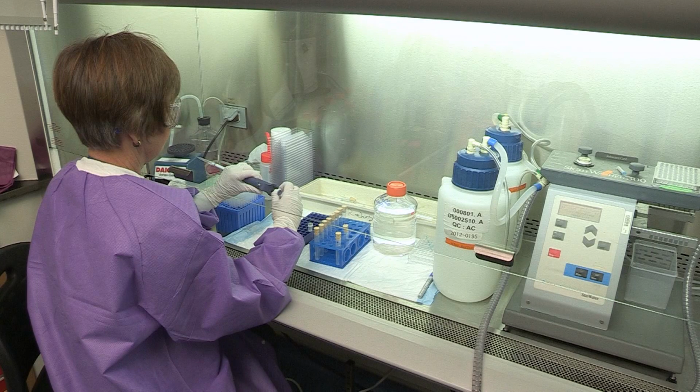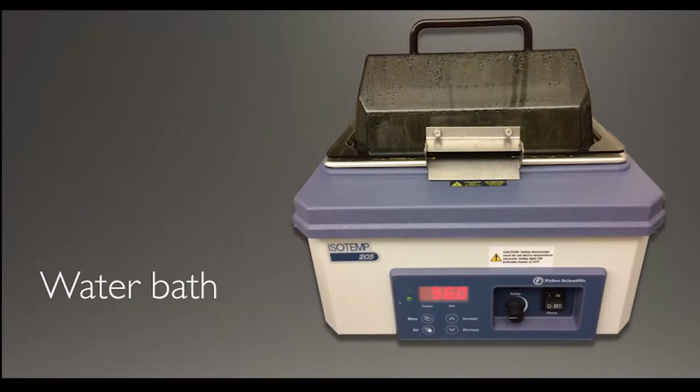If cerebrospinal fluid is the test sample type, it should be used undiluted or a maximum dilution of 1 to 5, and a negative CSF control should also be placed on the plate at the same dilution as the test specimen. Due to volume restrictions, it is reasonable to test CSF in a single well on viral and normal antigens. Samples should be diluted in a biosafety cabinet or should have been heat inactivated at 56 degrees C for 30 minutes to 2 hours if a safety cabinet is unavailable.